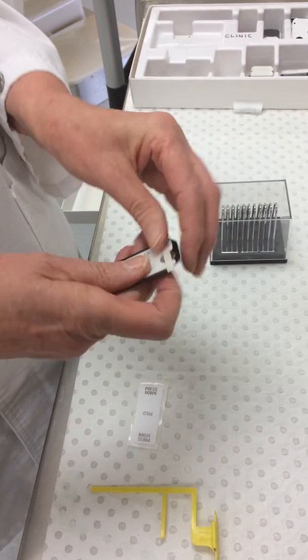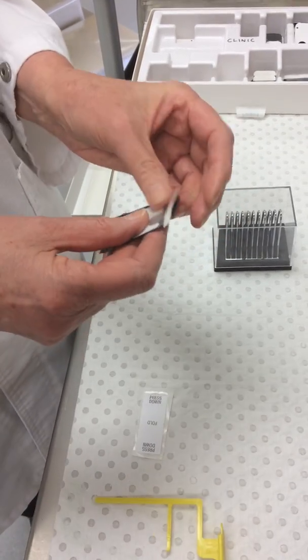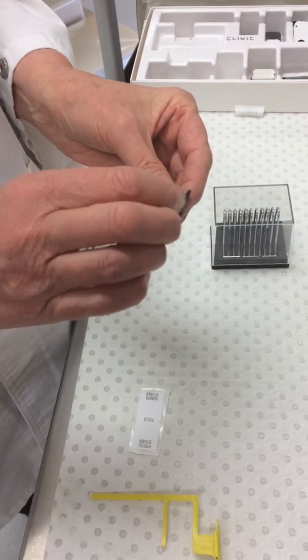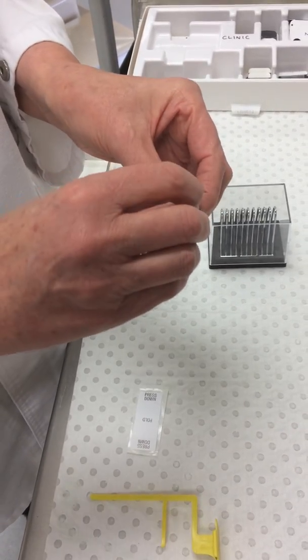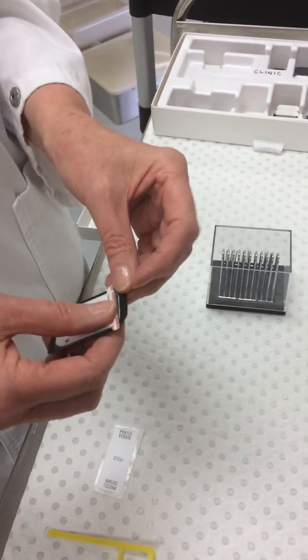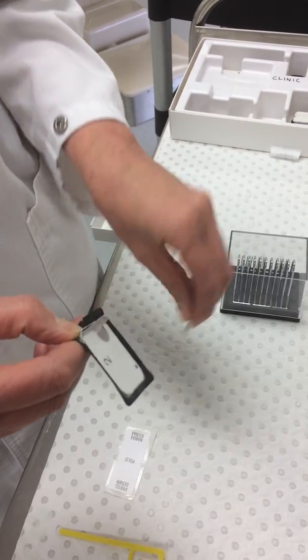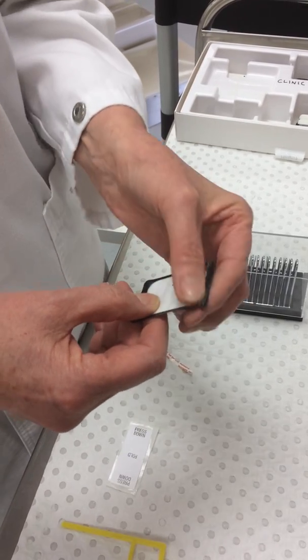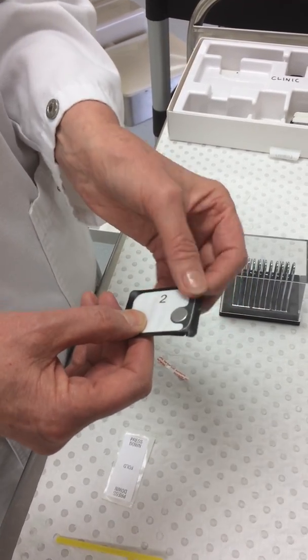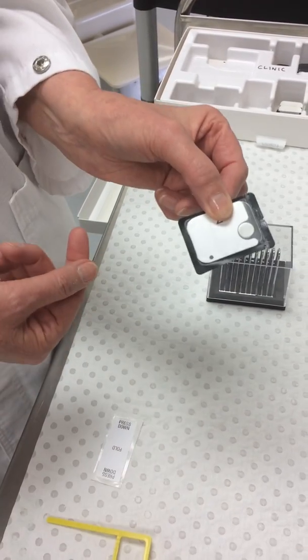Slide it in. And once you've got it in, you then remove the adhesive strip and stick them together. That's your phosphor plate.